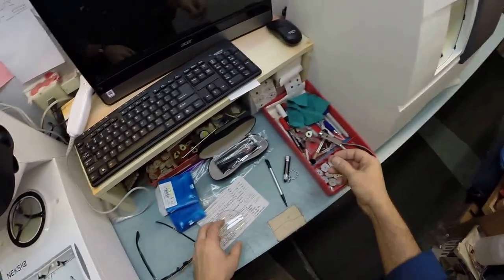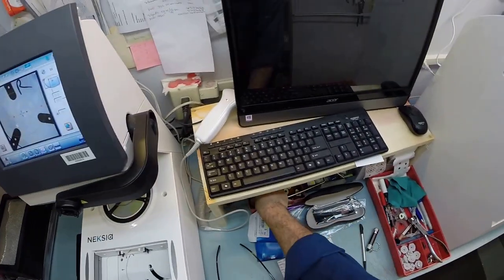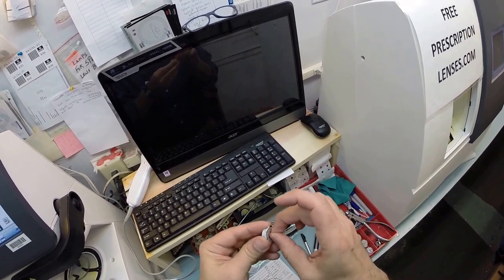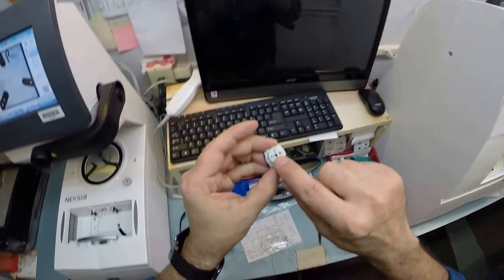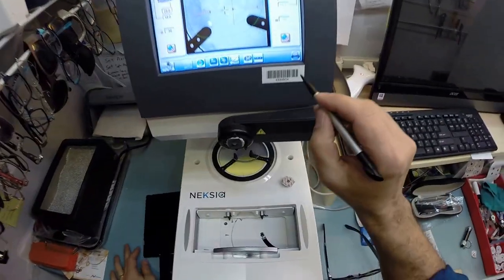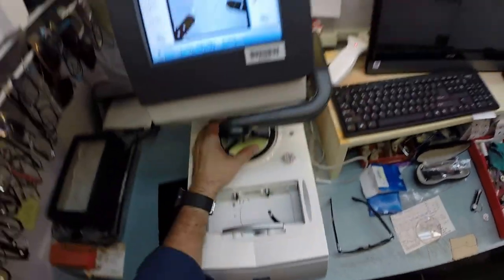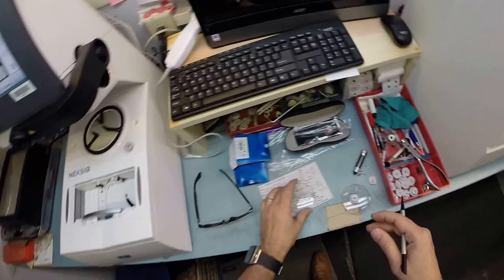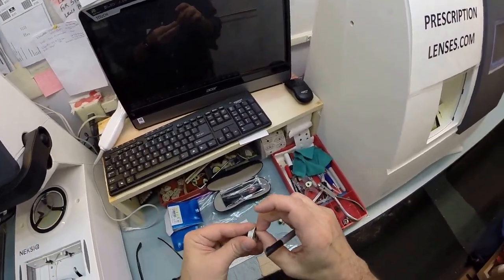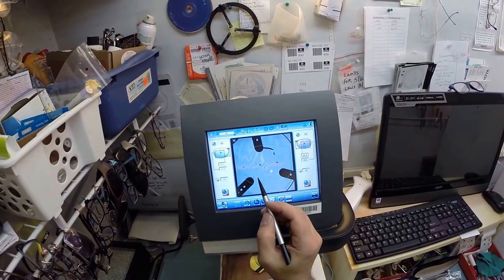This is a block I need to attach to your lens with a double-sided adhesive sticker. I'm gonna pull the paper away to make this side sticky. This little silver button in the back is a magnet that holds it in place on this arm. I'm gonna take my stylus, hit the button, and the block is applied to your left lens. Let's do the same thing for the right. Line up the magnet, get these lined up perfectly, and hit that button. The arm's gonna come down and drop onto your lens.